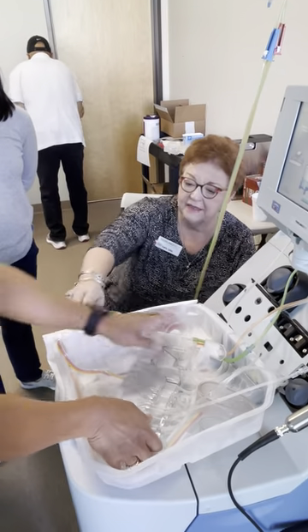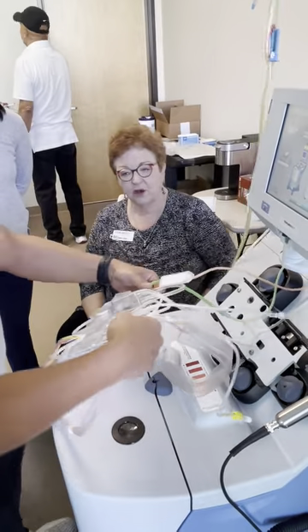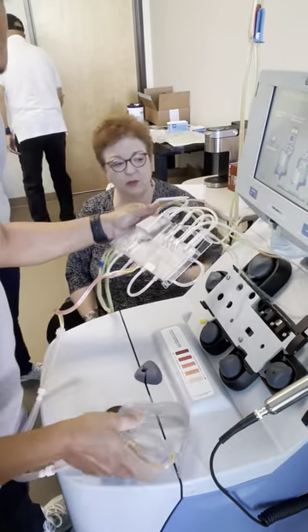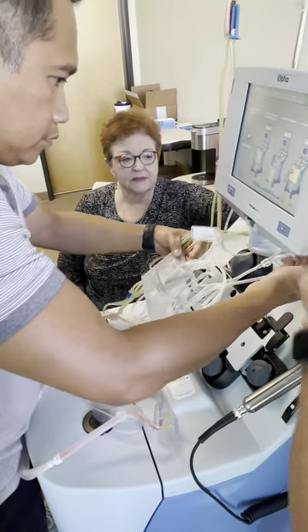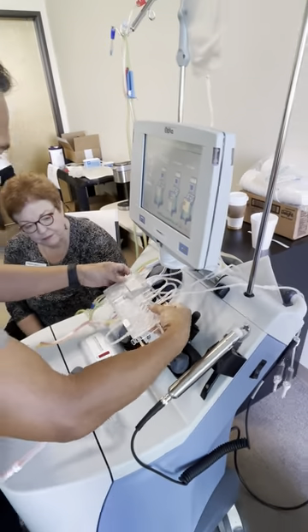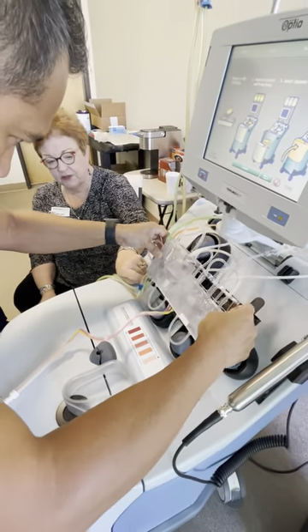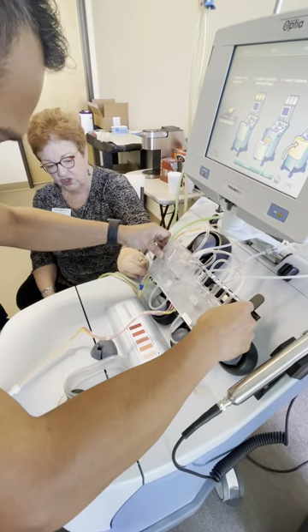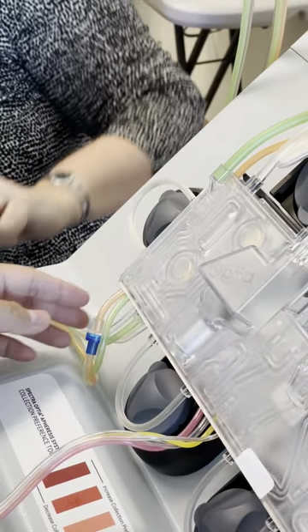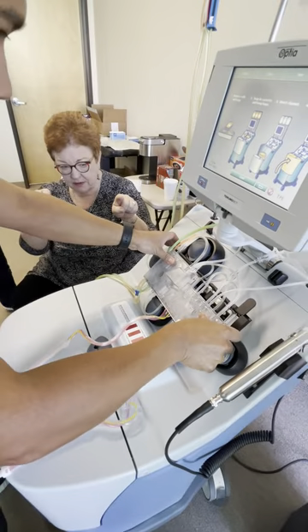Take out the cassette and the channel. Load the cassette into the lower edge of the tray. Push the top two corners — make sure these are all out of the way — and snap it into place. So the lower ledge goes first. Tip it into the lower ledge. See that little ledge right there? Get the plastics over it on the side. See the tabs? Gently push. Snap. Good.